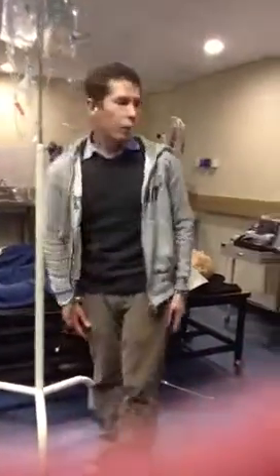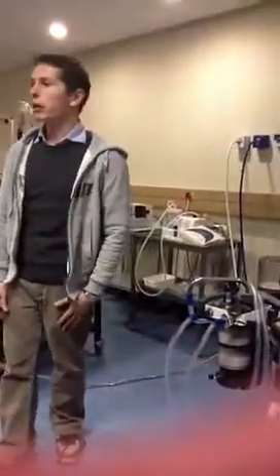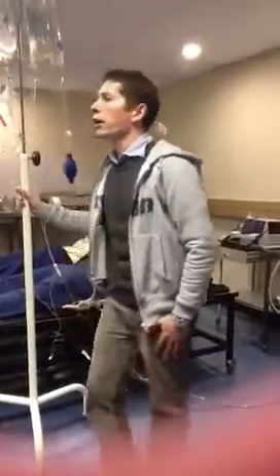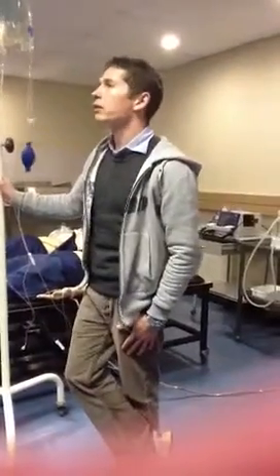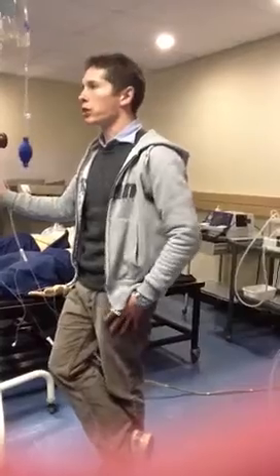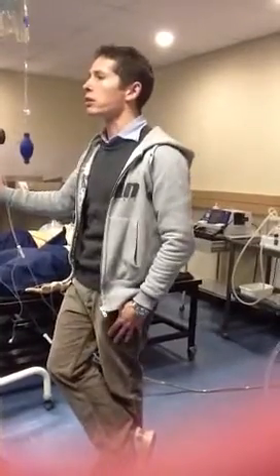The pressure from the cylinder is usually about 137 bar. So that's 137 times atmospheric pressure. It's a huge amount of pressure, more than 10,000 kilopascals.